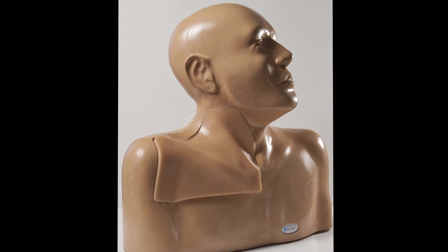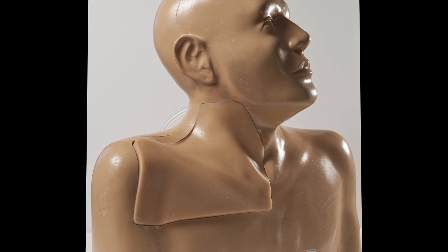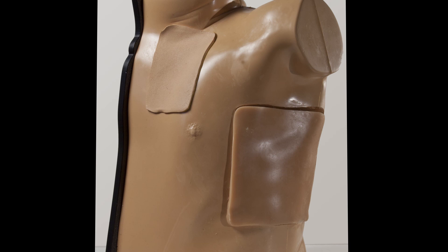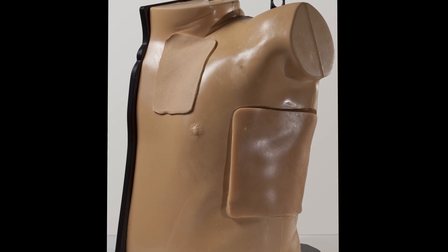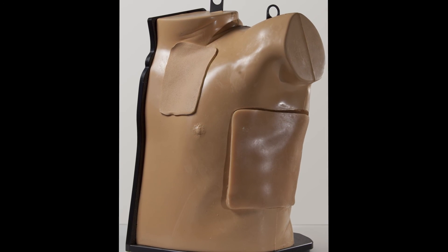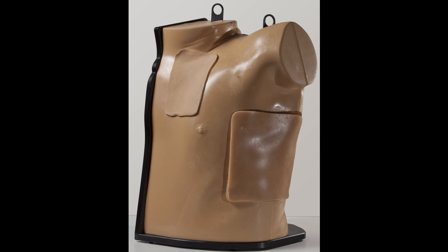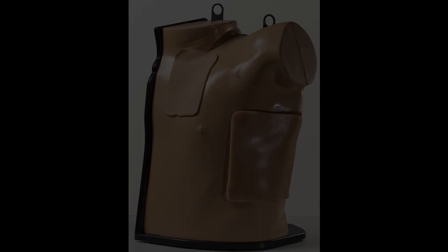Training ultrasound phantoms aid the user in the development and practice of skills associated with ultrasound-guided procedures. These models typically feature a fluid-filled region that can mimic vascular spaces or potential fluid-filled spaces. The synthetic tissue can sometimes be replaced after being damaged by multiple needle sticks.